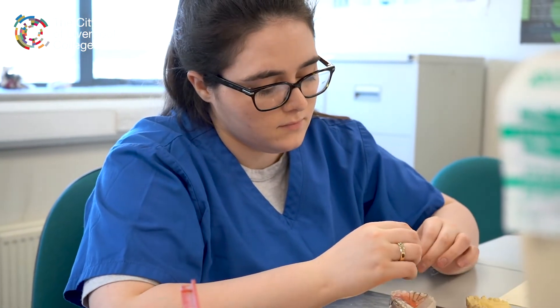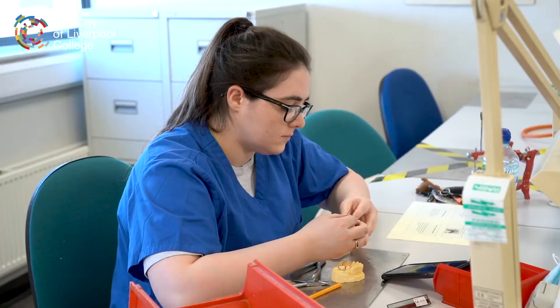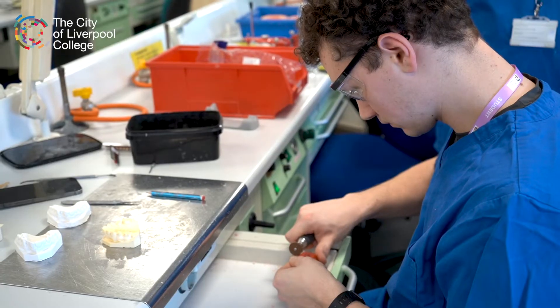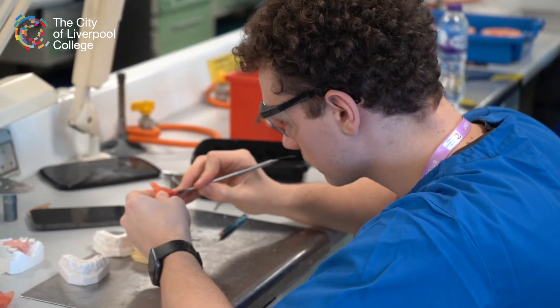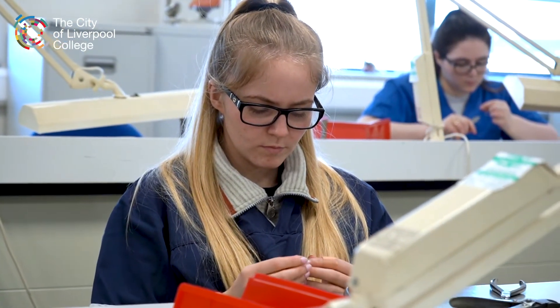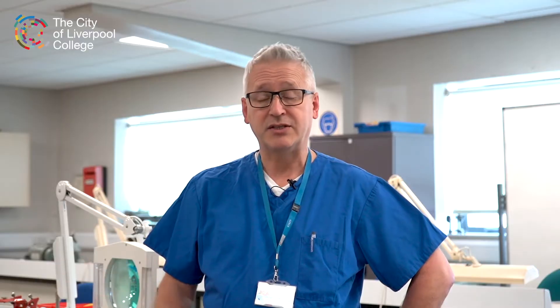While studying on the course you'll do work in the laboratory here, and once you're working in the commercial sector or a hospital environment you'll also be completing our workplace modules. In the first year you keep a record of all the practical work you're doing for all the patient cases as you develop your skills. In year two you'll do a case study from beginning to end — to a standard good enough to go in a patient's mouth — liaising with a dentist and your workplace mentor, and writing a technical report. In the third year you do the same again but at a higher level with a more complex patient case.